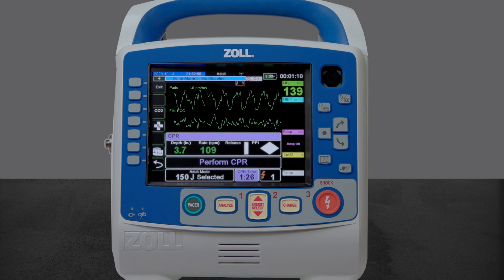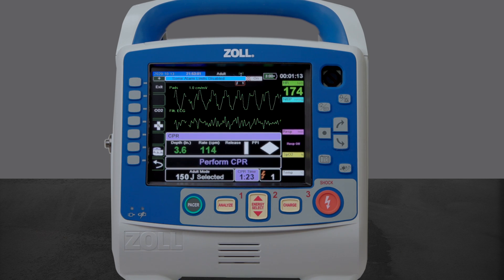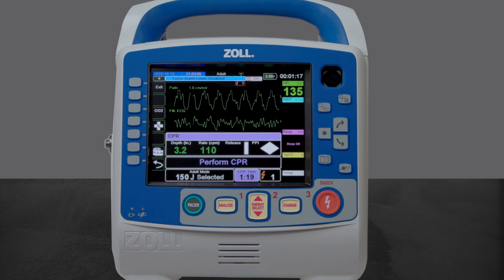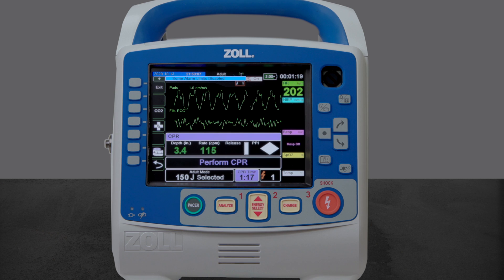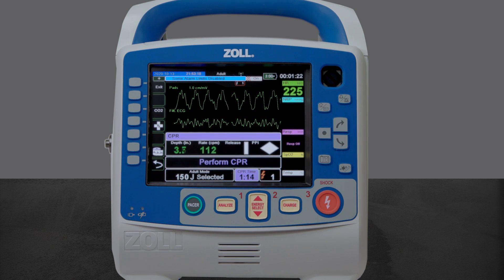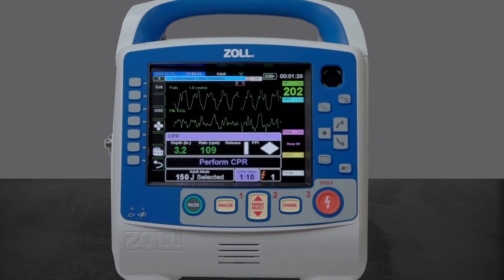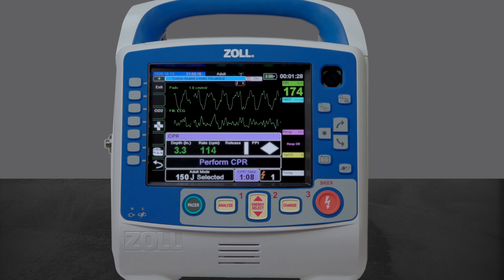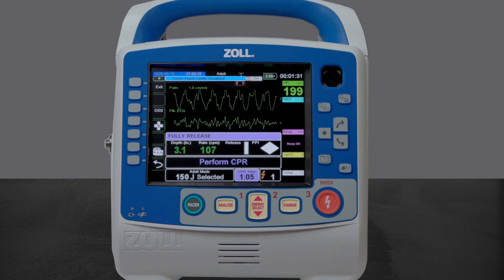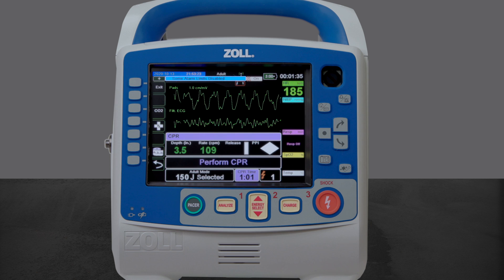Zoll's rapid shock algorithm gives rescuers the unmatched ability to improve CPR. It delivers shock-no-shock decisions in as little as 3 seconds while minimizing pauses to compressions. In this video, we will demonstrate how rapid shock can decrease total CPR pause time by exceeding performance standards established by the American Heart Association for analysis algorithm performance.